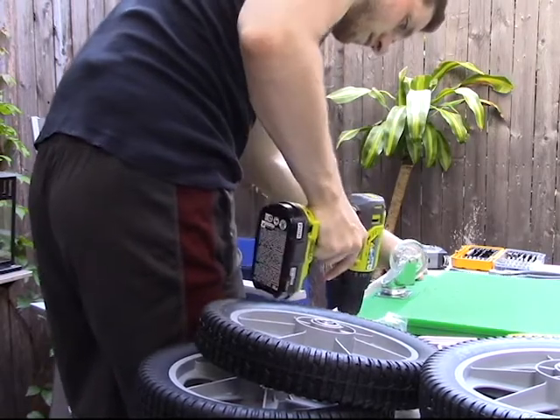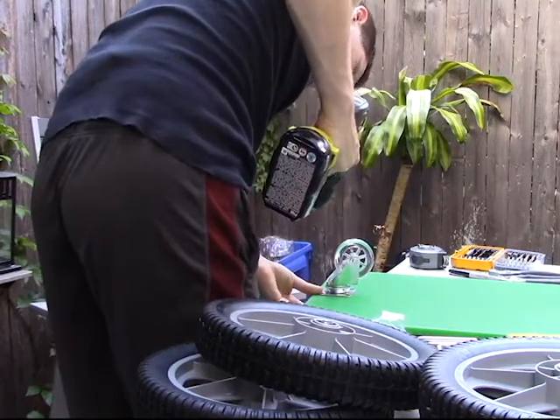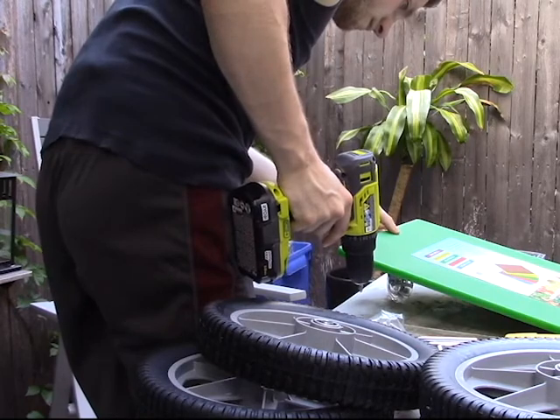This build uses two different size casters: a one-and-a-half and a two-inch caster wheel. The two-inch caster goes on the back so that the child can lean forward slightly, which encourages movement and posture.